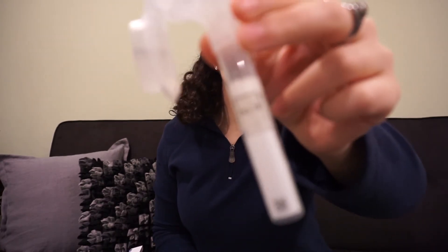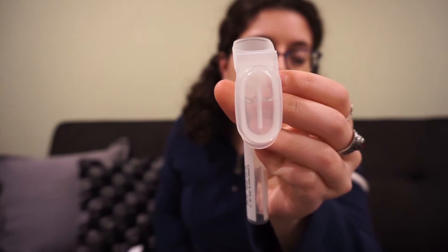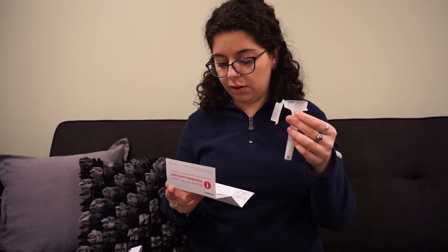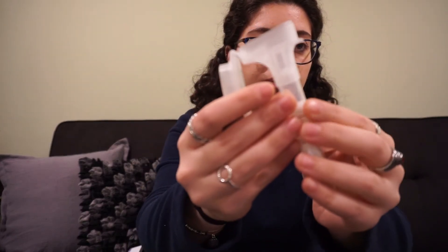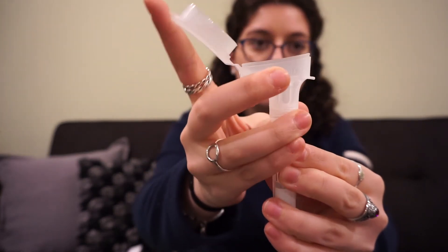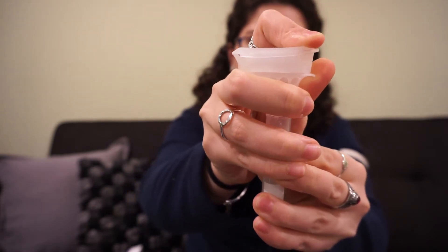I think I've reached this fill line. I'm going to show it up close for anyone who thinks they might want to skip this part. So there it is — you can see the bubbles went over. This liquid on this side is going to mix with my saliva.